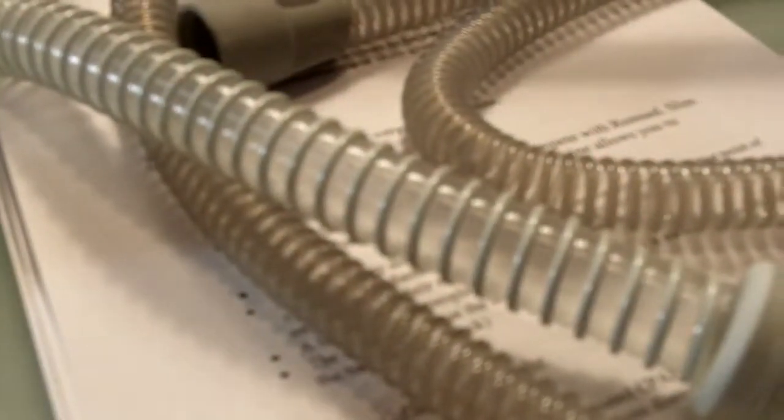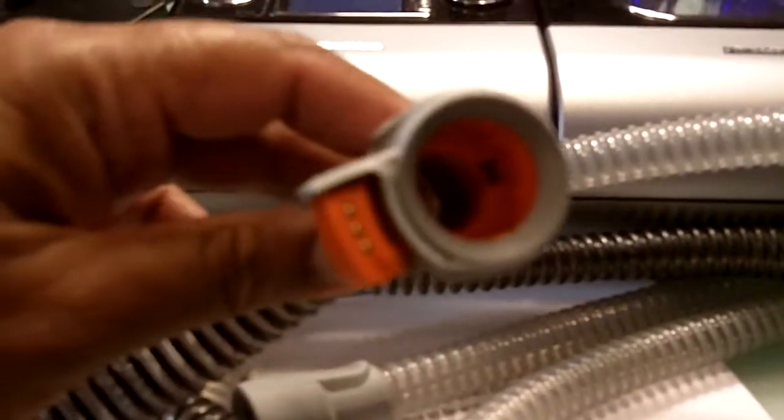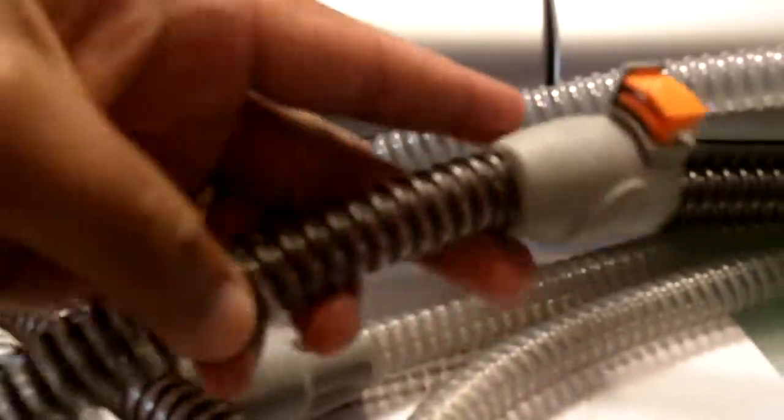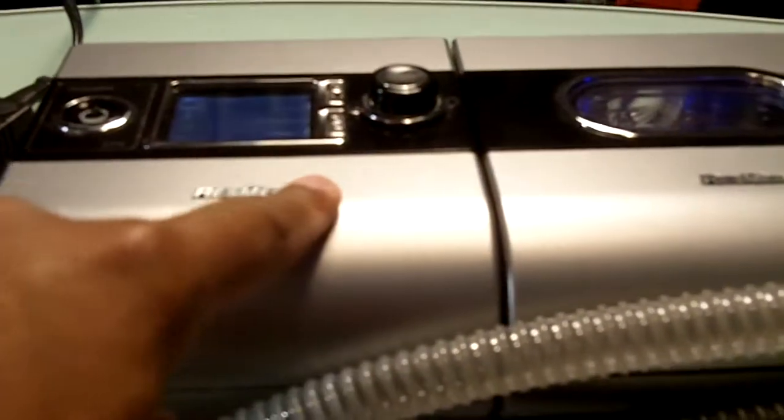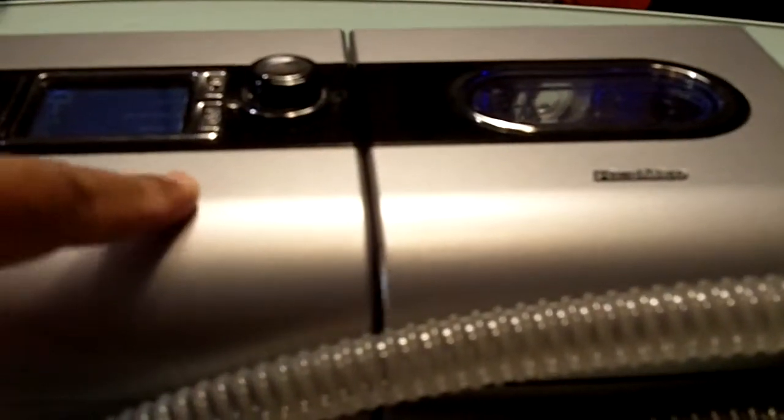The bad thing about, or the difference, actually I think it's a bad thing, is in ResMed, you can attach a climate line tubing. This CPAP tubing has heated wires embedded into it. This is to reduce condensation and water in your tubing or water in your CPAP mask, which is very uncomfortable.